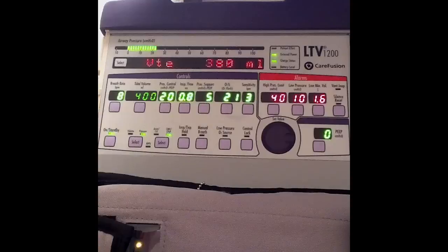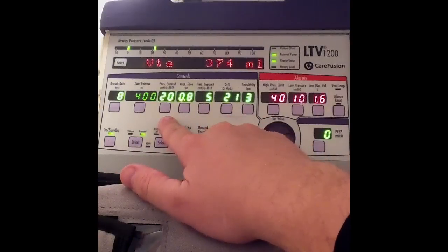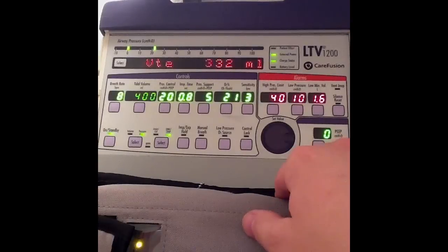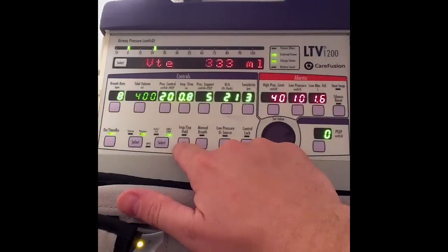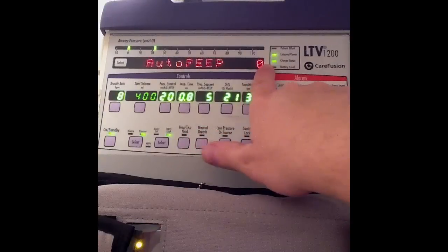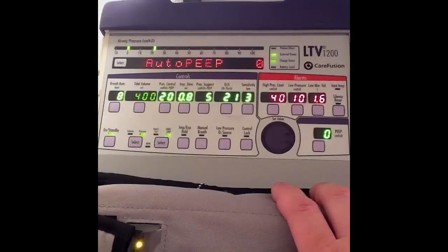Now let's talk about assessing for auto PEEP and assessing the plateau pressure. I currently have pressure control ventilation in SIMV mode, mandatory rate of 8, peak inspiratory pressure of 20, inspiratory time of 0.8 seconds, pressure support of 5, FiO2 21%, sensitivity of 3 liters, and zero PEEP. To assess for auto PEEP, I select the inspiratory/expiratory hold button, select expiratory hold, hold it down, and it gives me my auto PEEP — in this case it is 0. You'd also want to use a graphics package to assess for auto PEEP.